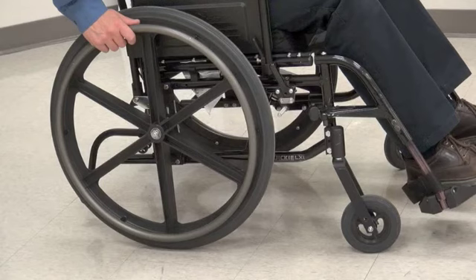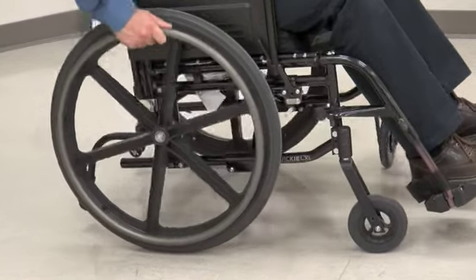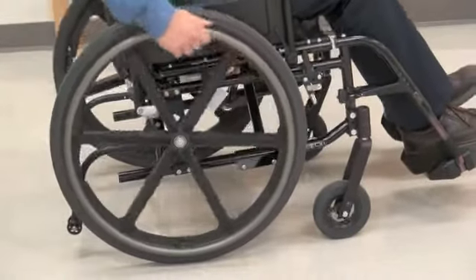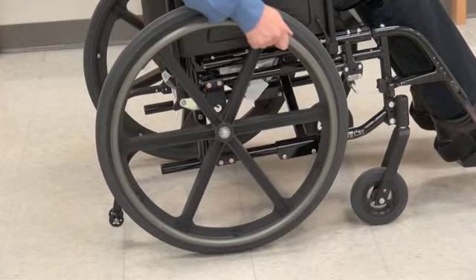You may notice that at times the wheelchair is harder to push or starts to turn unexpectedly. If the casters are facing forwards when you push, they need to swing around into the trailing position. This may cause the chair to turn slightly and requires a stronger push, especially on soft surfaces like carpet.